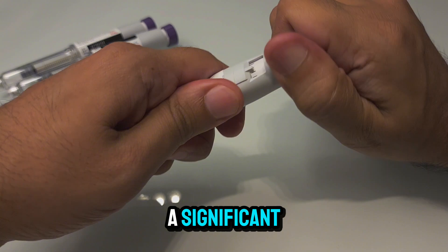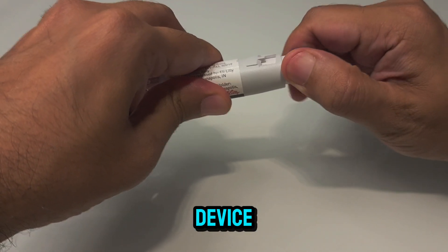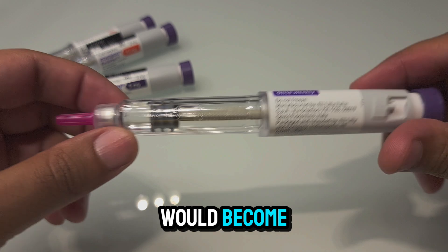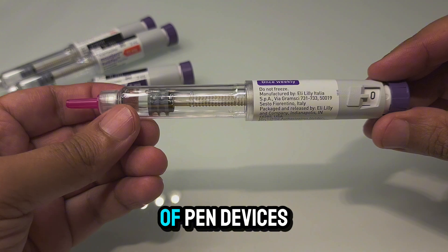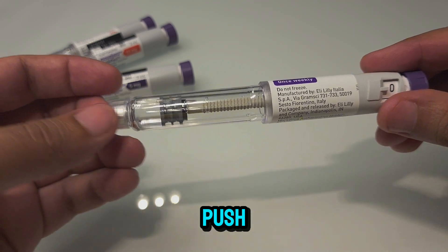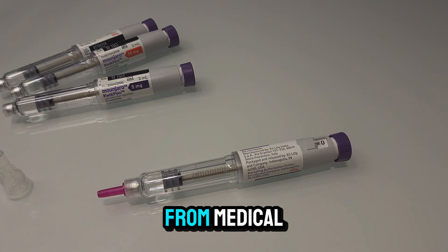I put a significant amount of force here, but this is not something I would recommend. My personal view is this will break the spring mechanism in the pen device, and some plastic components can be mixed into the fluid, which would be considered contamination, making both the device and fluid unsafe. Therefore, for personal safety, I would discourage using pen devices after you have reached this mark. It is not advisable to try and push the pen device further to remove this fluid.